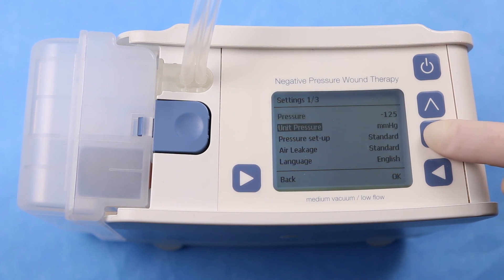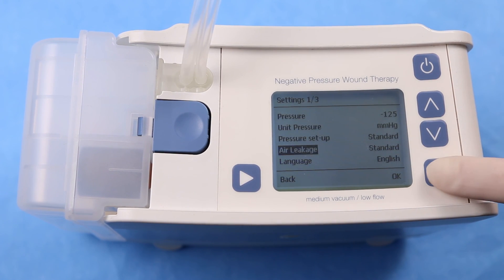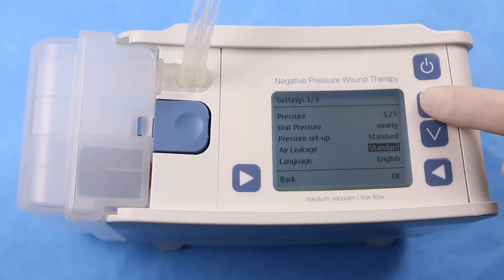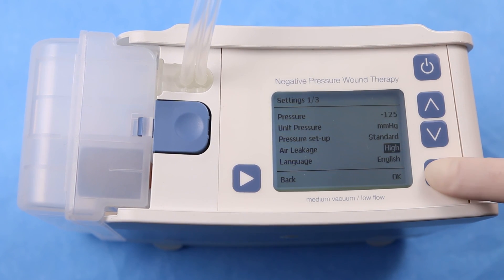To switch air leakage volume between standard and high, make a selection with the up or down arrows. Press OK to confirm.